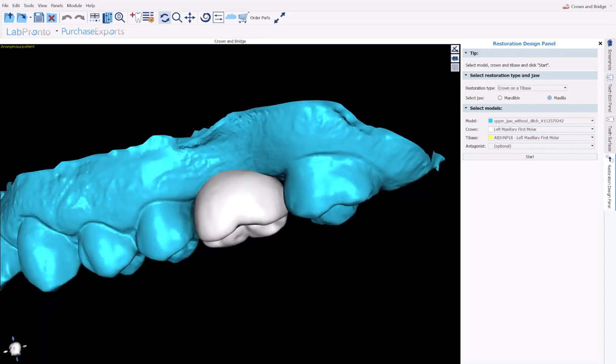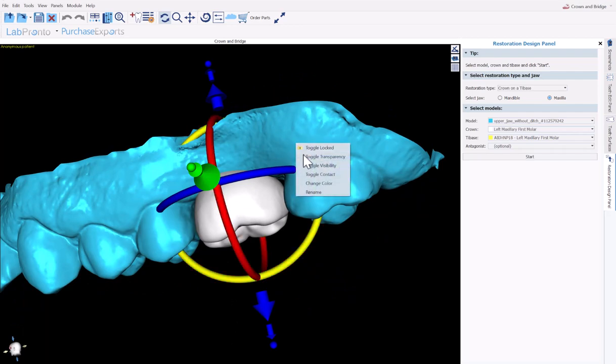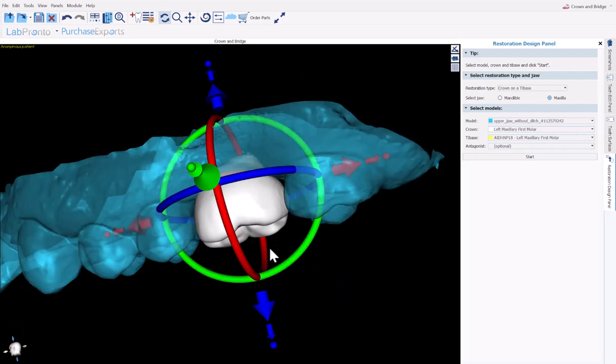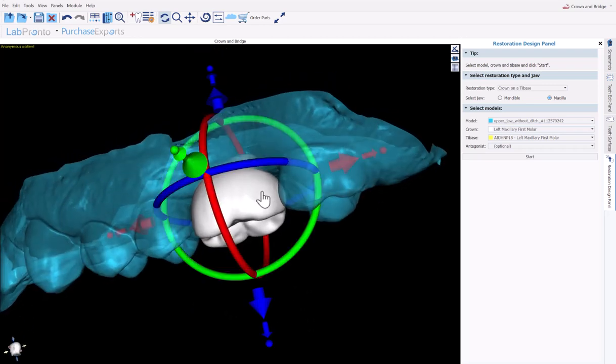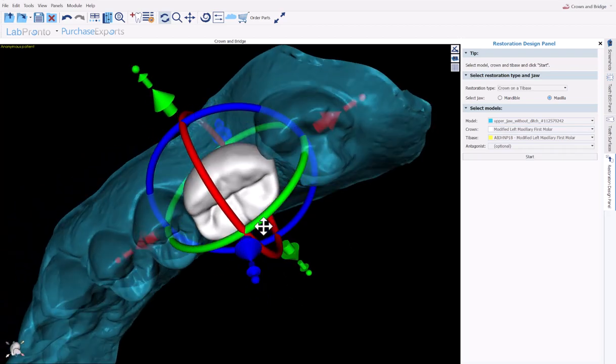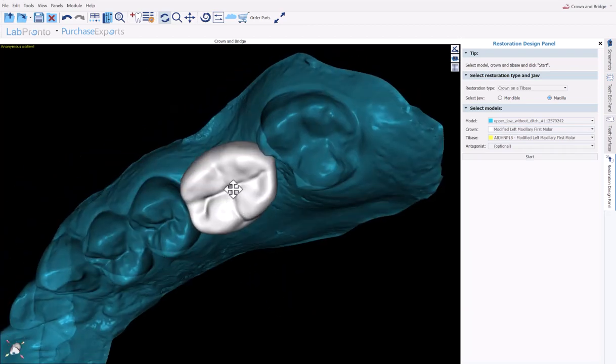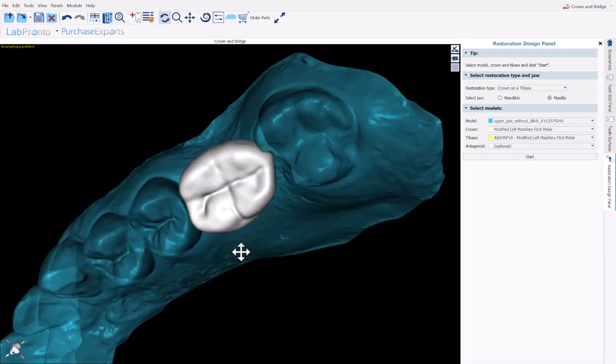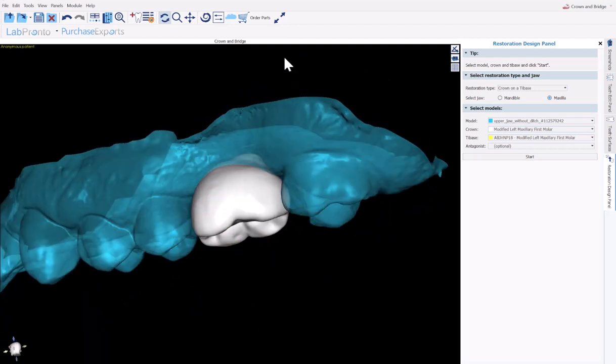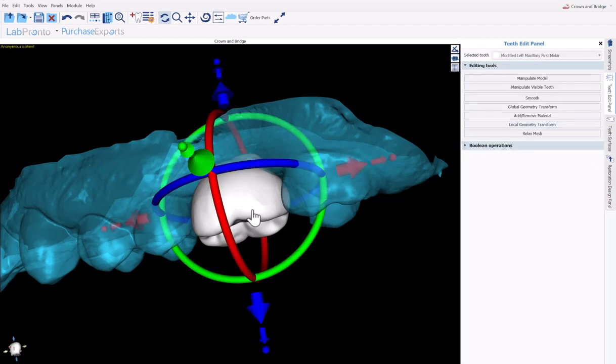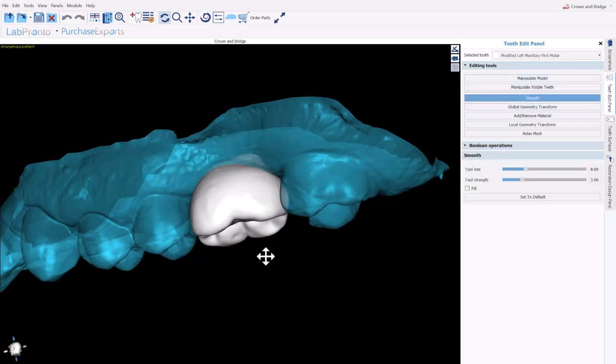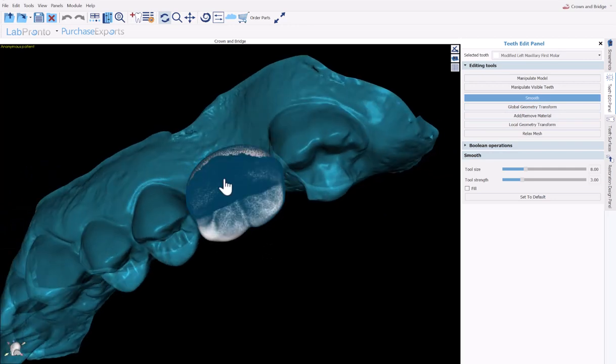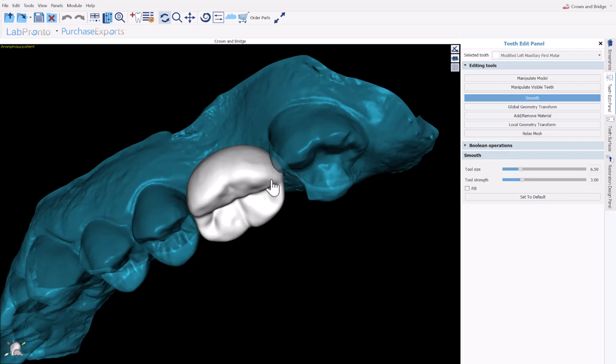If we do want to modify the tooth, one of the easiest ways is just click on it. You could change the transparency of the model itself, and then you could just use the widget to resize in any direction. If you want to increase contacts a little bit here, we could do that. And if you want to change the width, that's the simplest way to do that. Now we do have additional editing tools available via the teeth edit panel, and I recommend playing around with those. You could simply click a particular tool and then use your left mouse button and your shift key to activate the tool. You're able to change the tool size and the tool strength that we have right here.